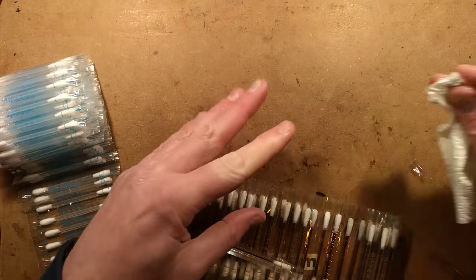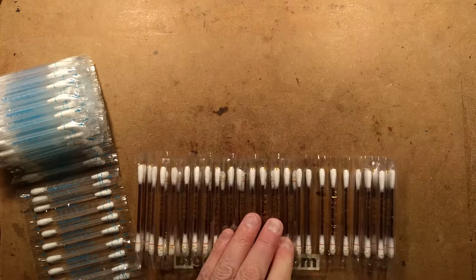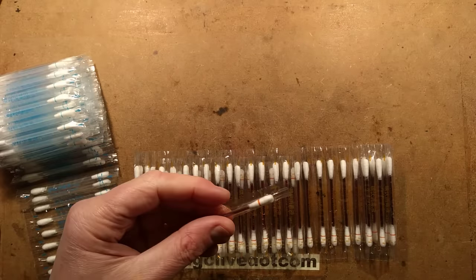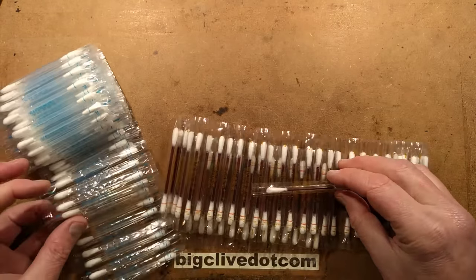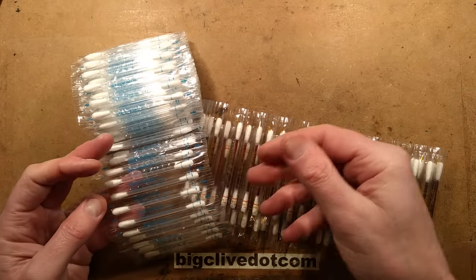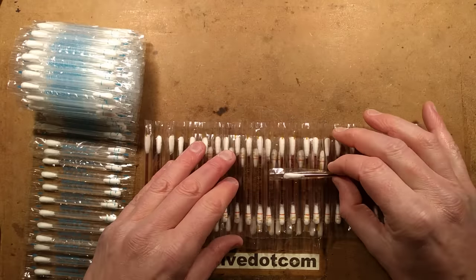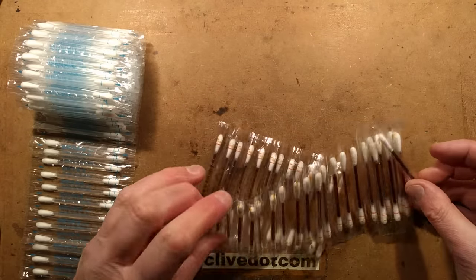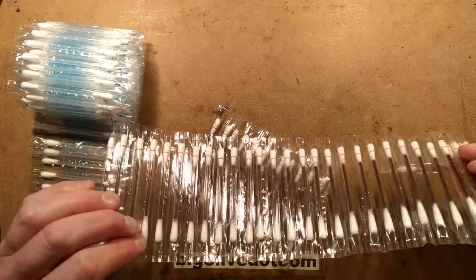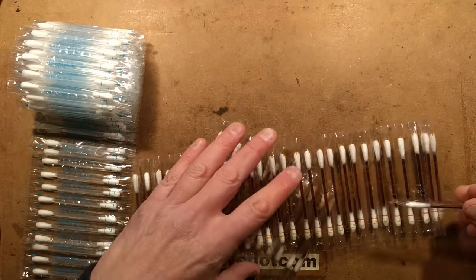It's clever and it works consistently, and there's no obvious means of seeing — particularly on the clear ones — how it does that. When you break it, you're breaking a sort of air seal and then the liquid can go down, but what stops it flowing out? That was the bit I wanted to see, because these things have shipped across the world and there's no sign of any leakage at all. They're absolutely clean. So how does that work?